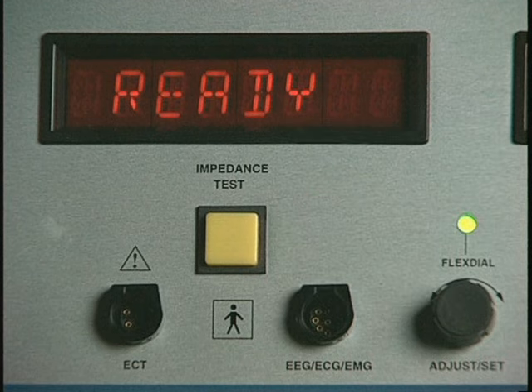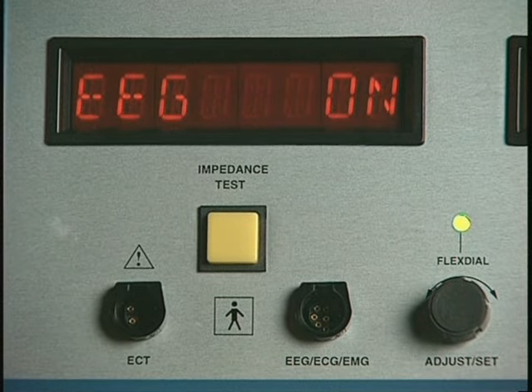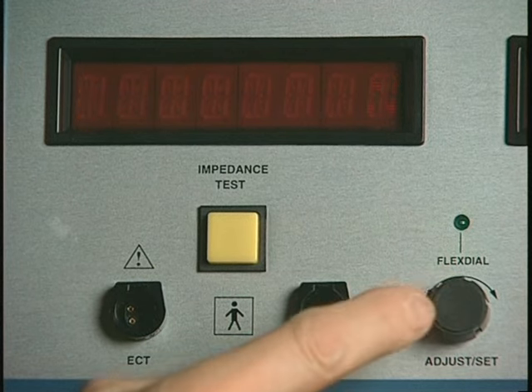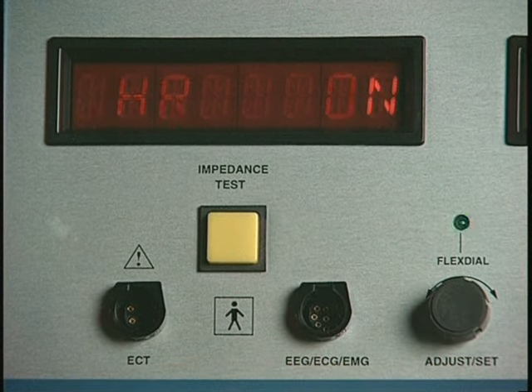Automatic determination and printout of seizure duration estimates based on analysis of the electromyogram and of the electrocardiogram are selected by following the same procedure just described for the EEG endpoint after this variable has been set. The next variable to appear in the display after EEG is set will be EMG on or off, and when that has been set, HR on or off for the ECG analysis.